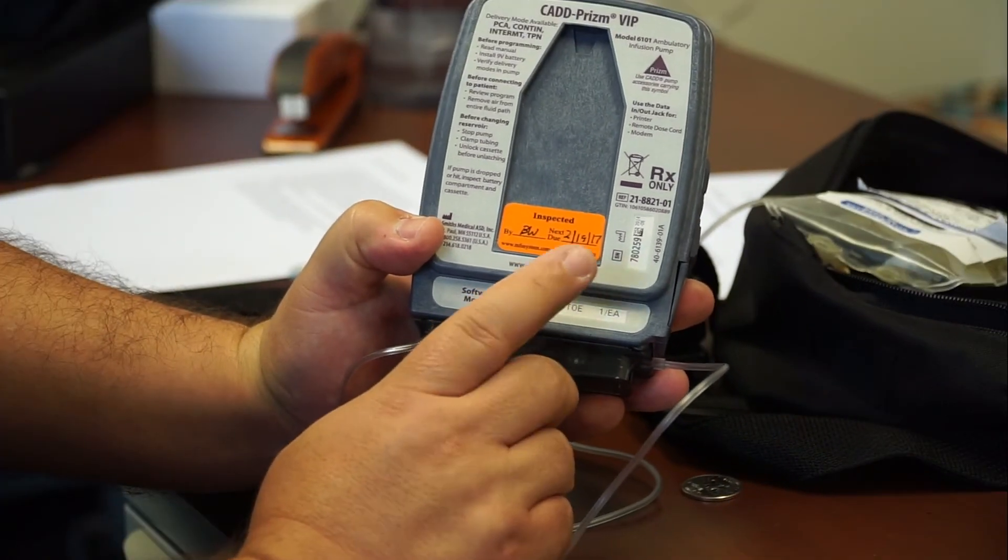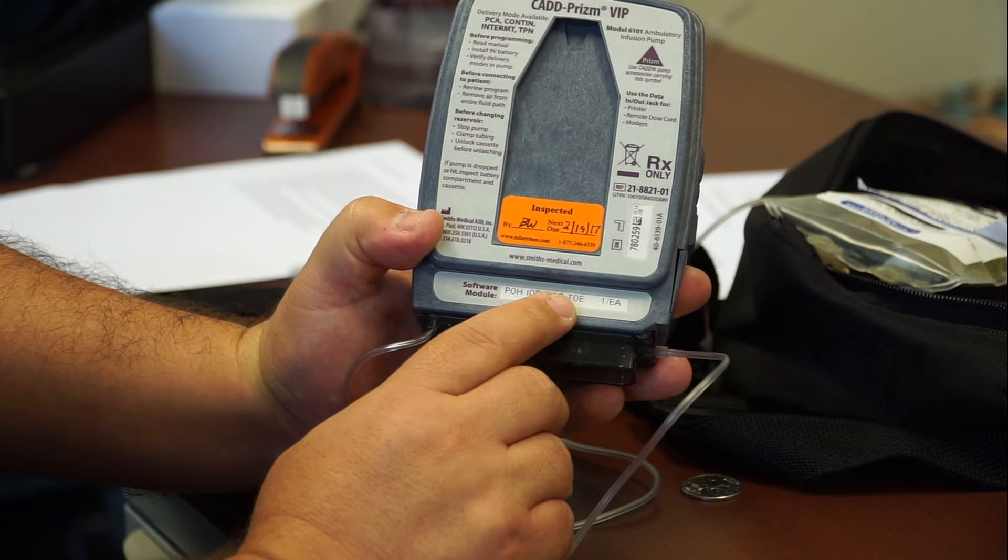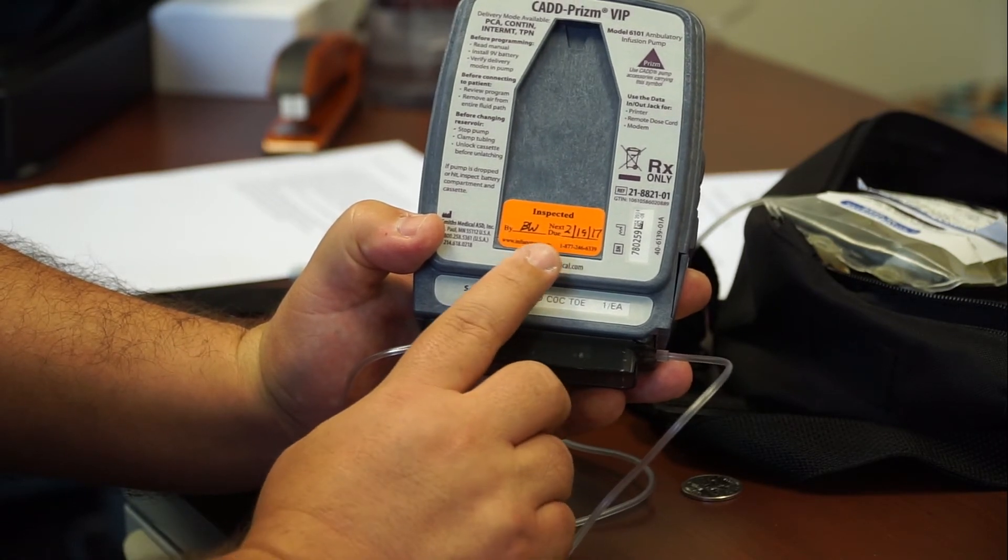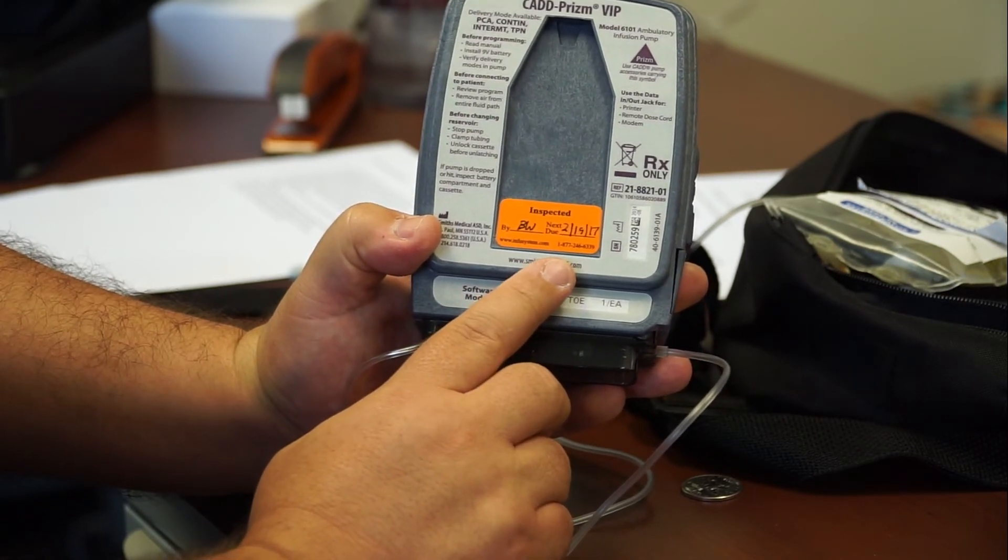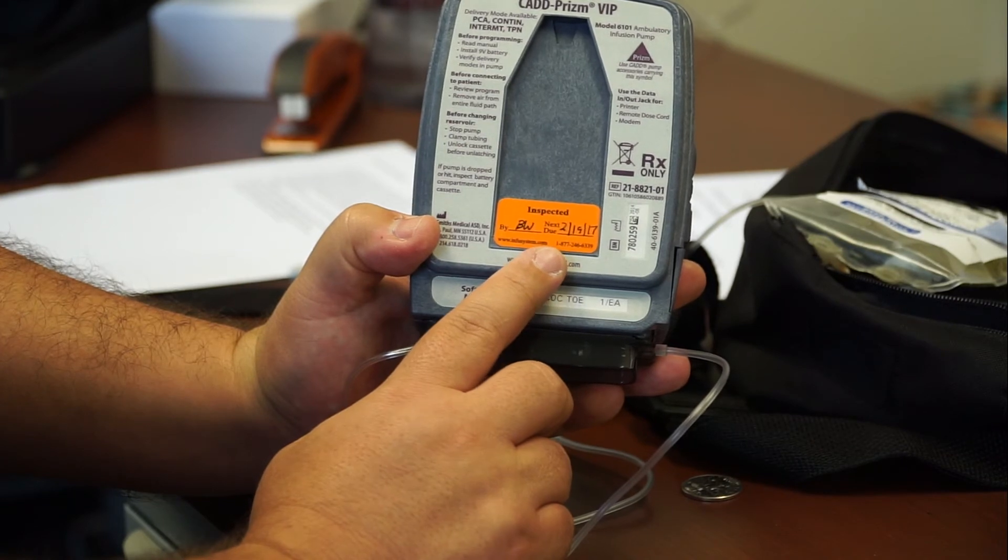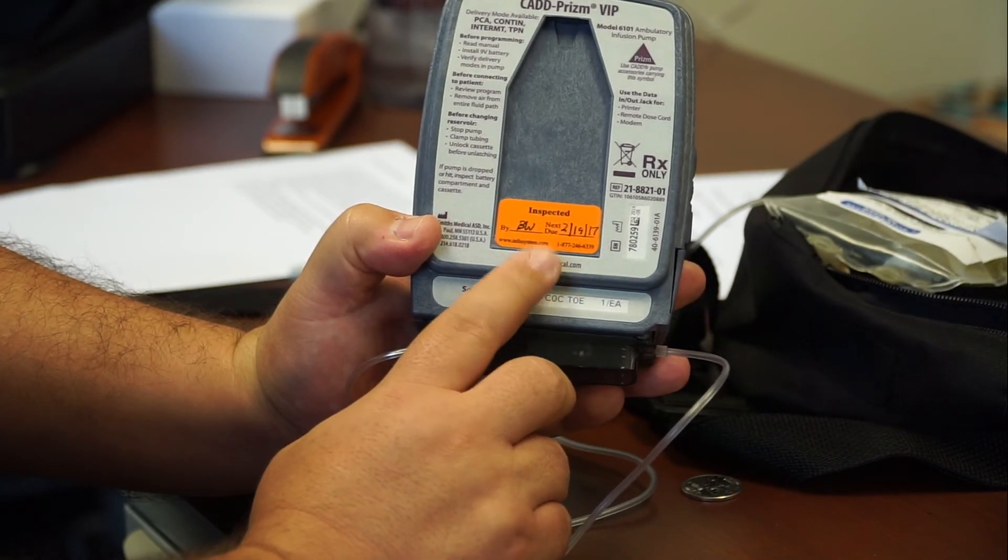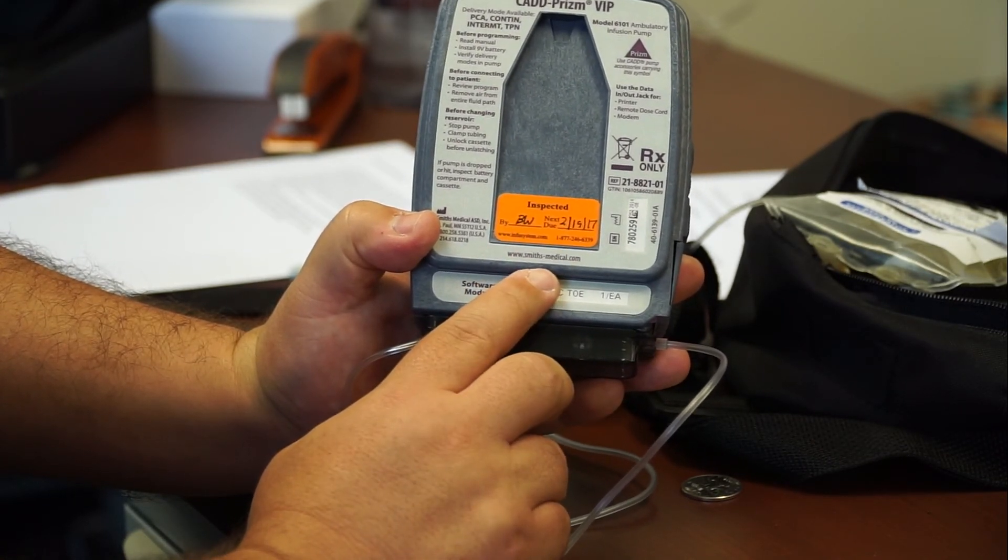So, this, again, this is a demonstration CADD pump, and so this one is expired. But no patient should have a calibration sticker on their pump that is expired. If it does, contact your infusion pharmacy immediately.